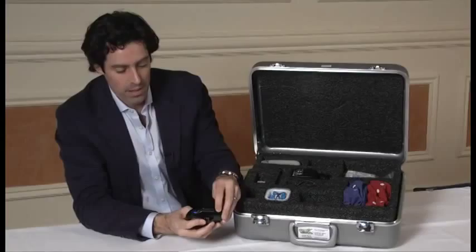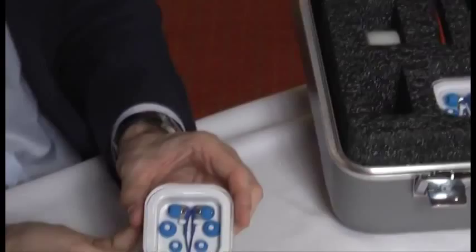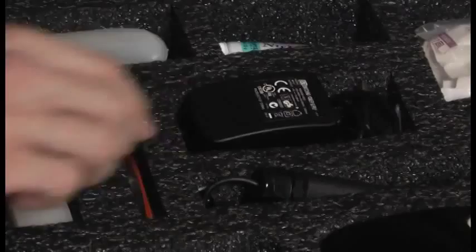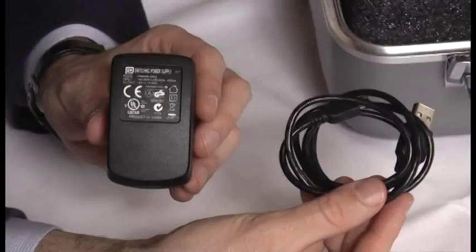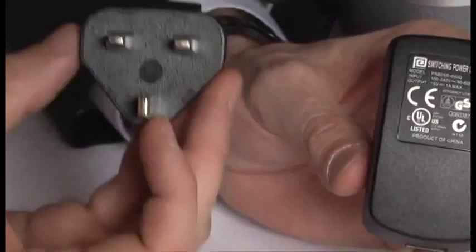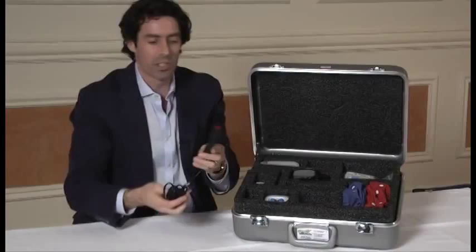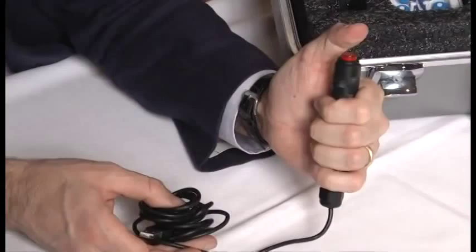Blue flashing light indicates that the amplifier is on but not paired with the system. It comes with ear buds for the auditory task. It has the patient response button, which is used during the test by the patient for responding to the stimulus.